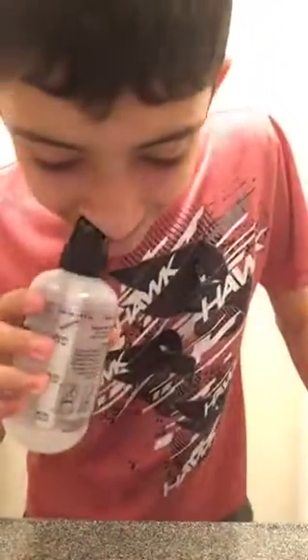I'm with my mom and today my doctor prescribed this for me because I haven't been feeling well for the past two days. My nose has been itchy and I've been blowing my nose a lot, so this might work. I hope it works. Let's just try it — this is my first time. Remember to breathe through your mouth, she said.